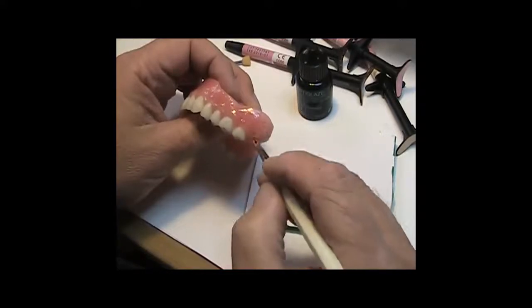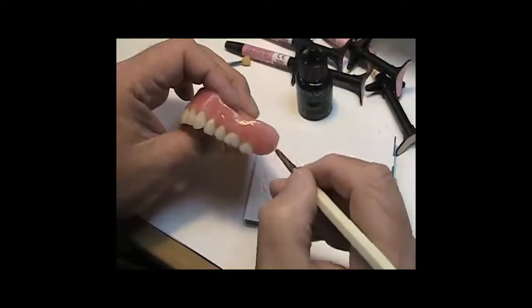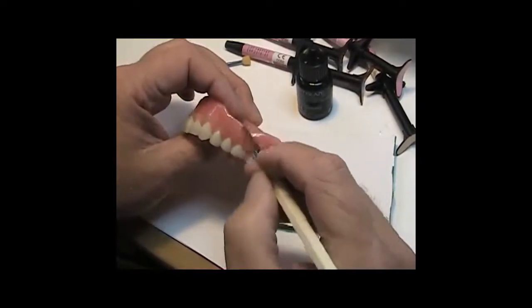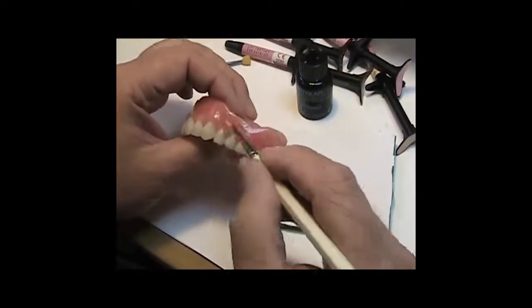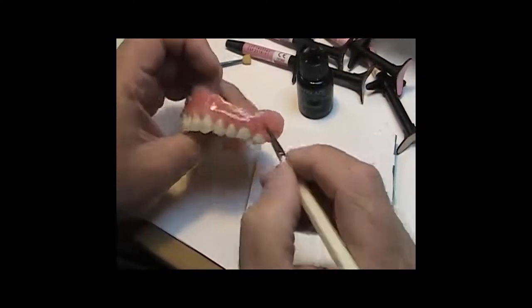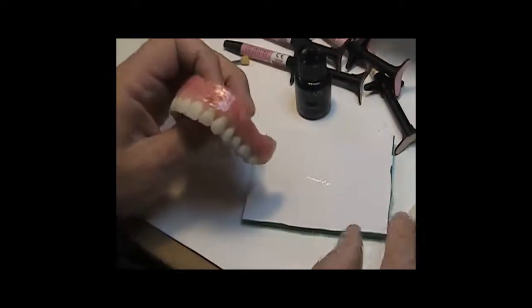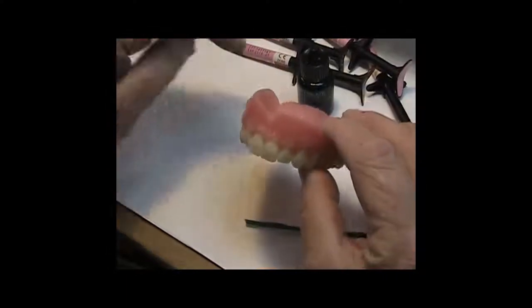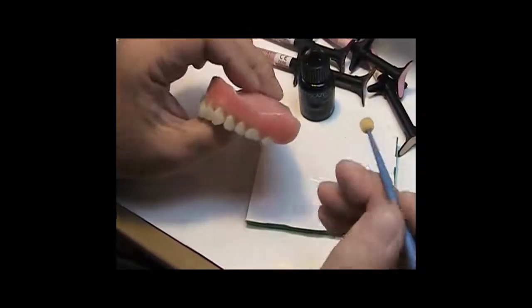If you were to put this, which I do, on the surface of your dentures, then what you get is not only the surface underneath the OptiGlaze, but you also have the surface that is sealed, protected, and strengthened. Yes, that's right, strengthened. I believe it. Science shows it, and I've got cases out in the field for a year, and they come back almost as glossy as the day they left the place. It's just another added benefit of using the product and also providing the best in my laboratory.